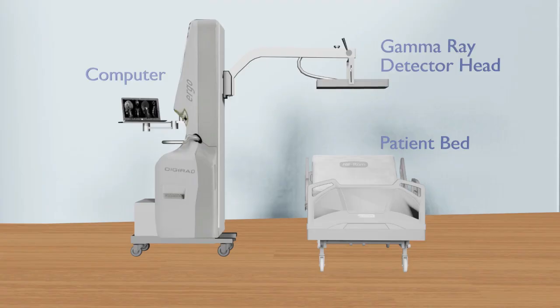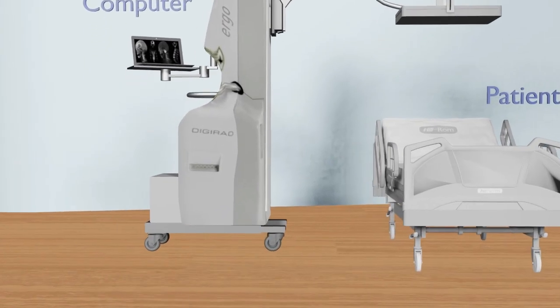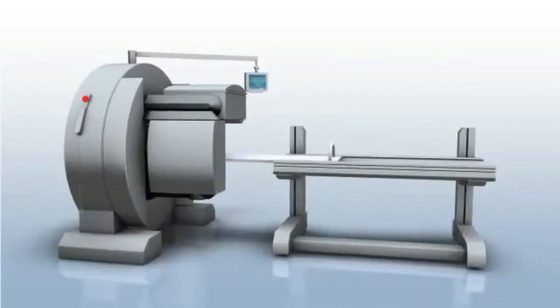Let's look into types of gamma cameras. There are two types of gamma cameras available currently on the market – the mobile gamma camera and the fixed gamma camera.